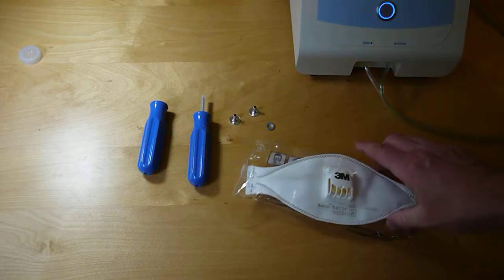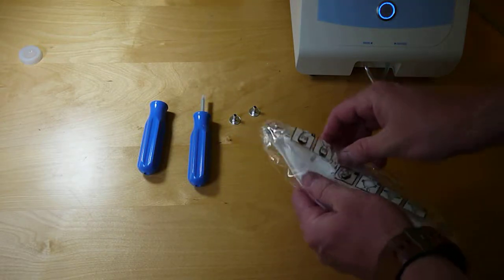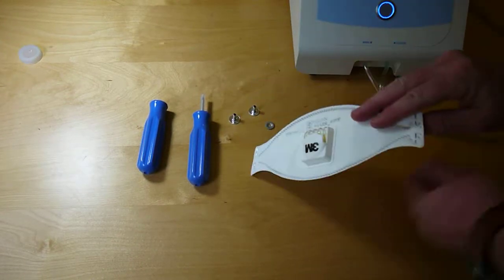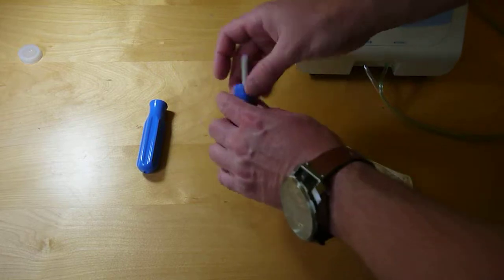To prepare an N95 mask for fit testing, first we remove it from packaging, use this tool.